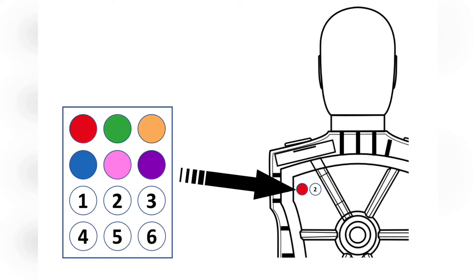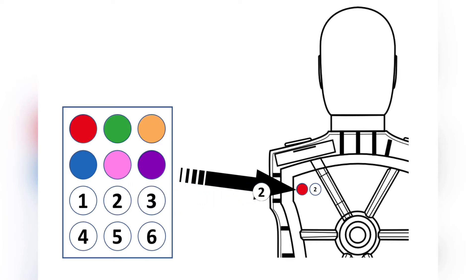The mannequin will start beeping every 5 seconds. This will be an indication that you physically have the correct mannequin that has been selected on your app for this operation. Next, select the desired color and number labels from the color ID sheet that was provided with your device. It is recommended that you place the labels on the back surface of the mannequin, near the battery compartment. Affix the labels to the mannequin.